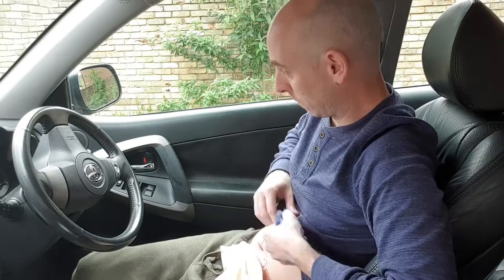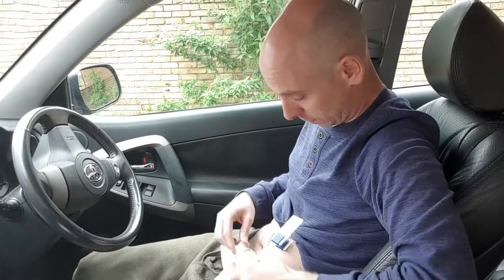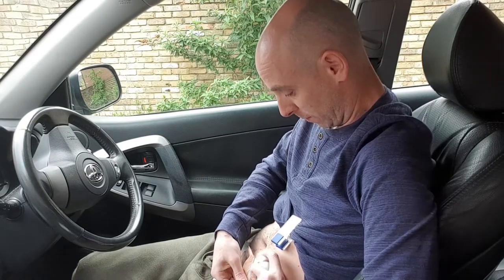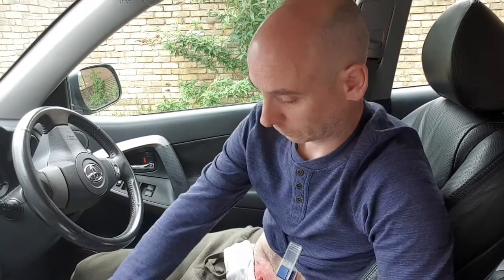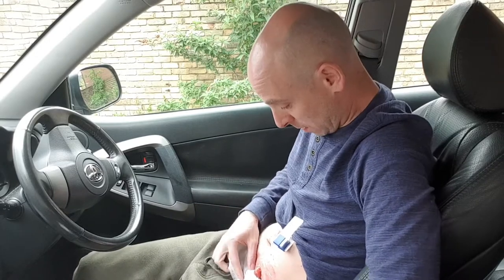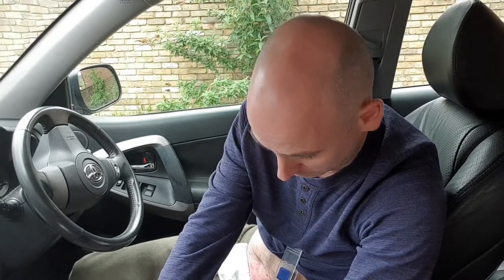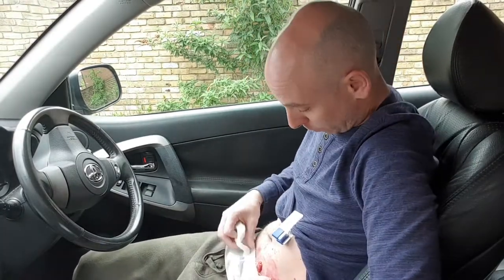So let's go about removing this bag. I've got my adhesive spray remover — we're just going to crack on. This is coming off quite easily. Bag's off — got that in the bin bag that's now around the gear stick. And as you can see, there's my stoma. My skin is sore around my stoma but that is perfectly normal for me. I've tried all sorts of things but not many things work. However, I do have some barrier spray with vitamin E in it that does work quite well at reducing it.